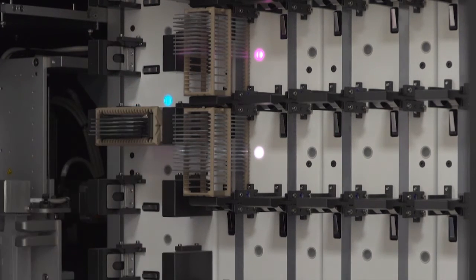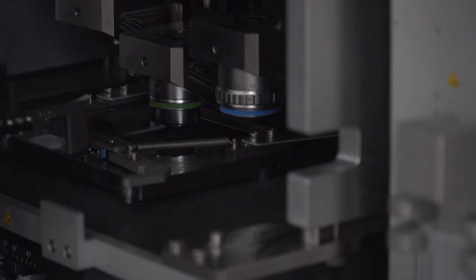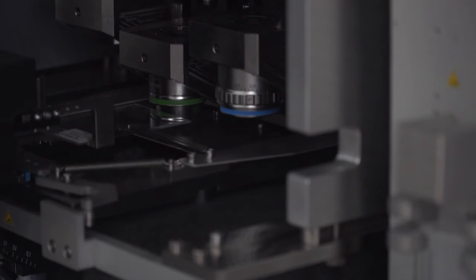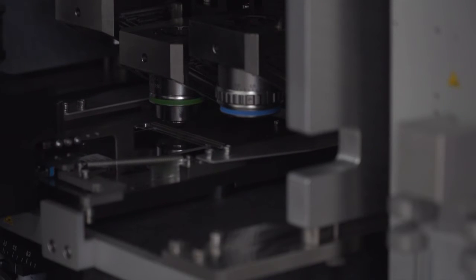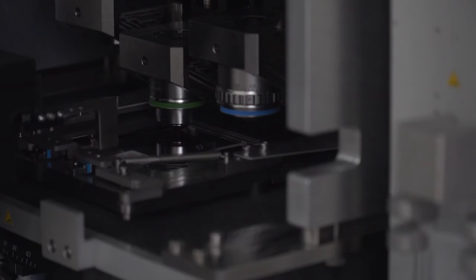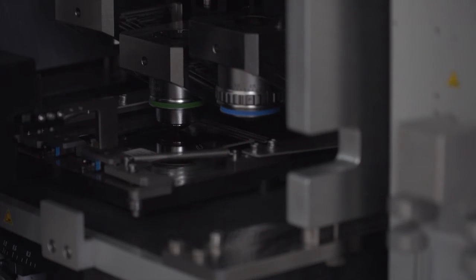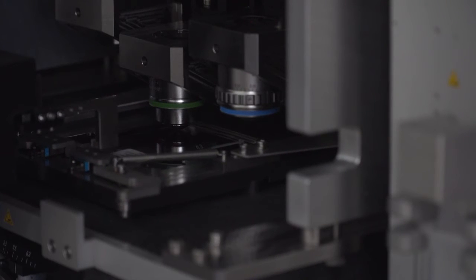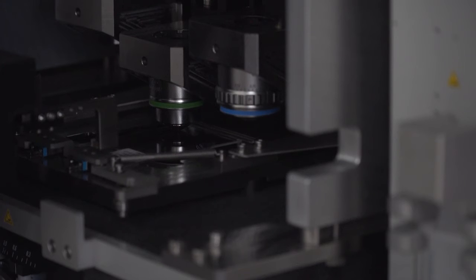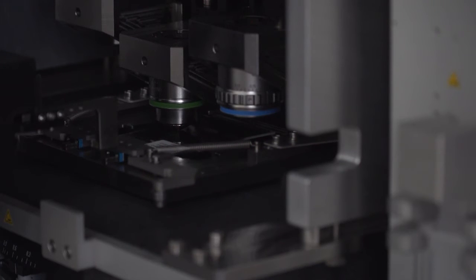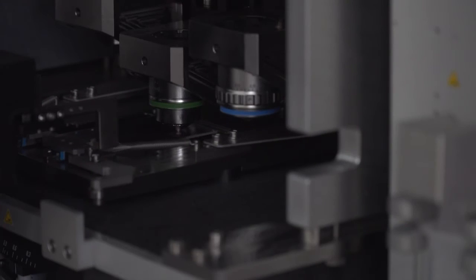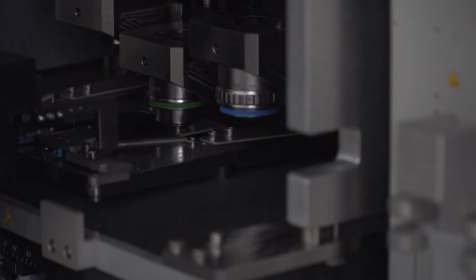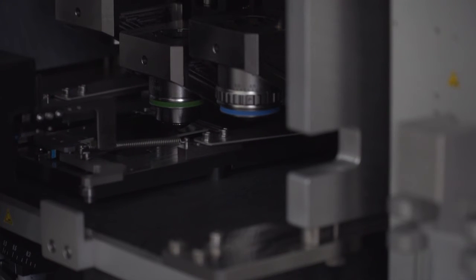We can use mega slides in the system. We use the same Sakura racks with an insert, and you can see the mega slides are placed in the middle of the stage. The scanning procedure is the same. You can mix and match mega slides or mega racks with normal racks. There is no loss of time at all.